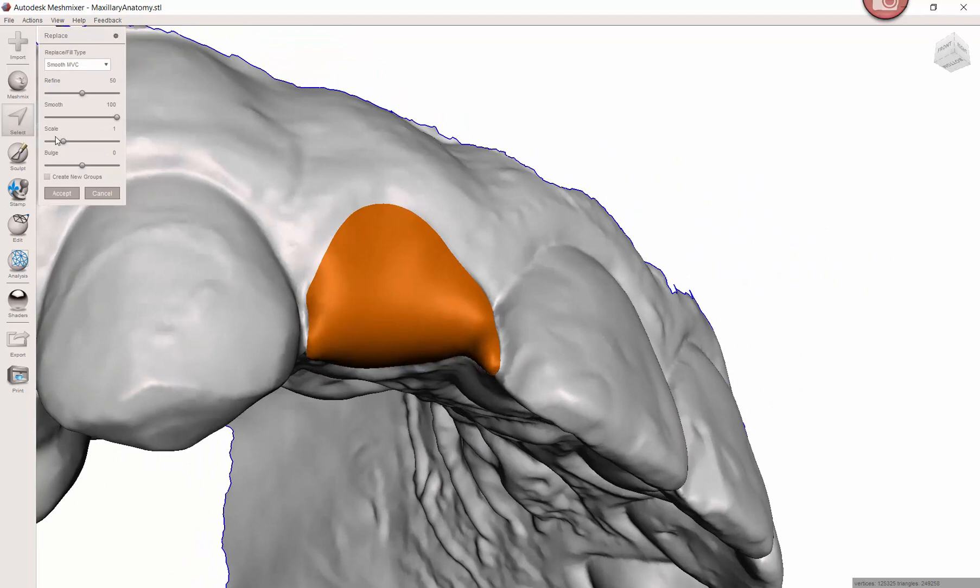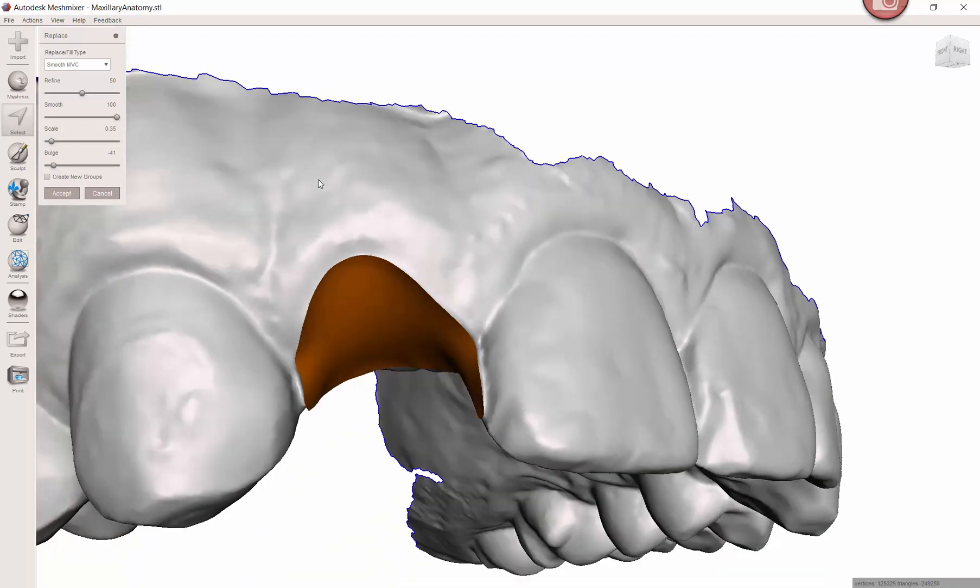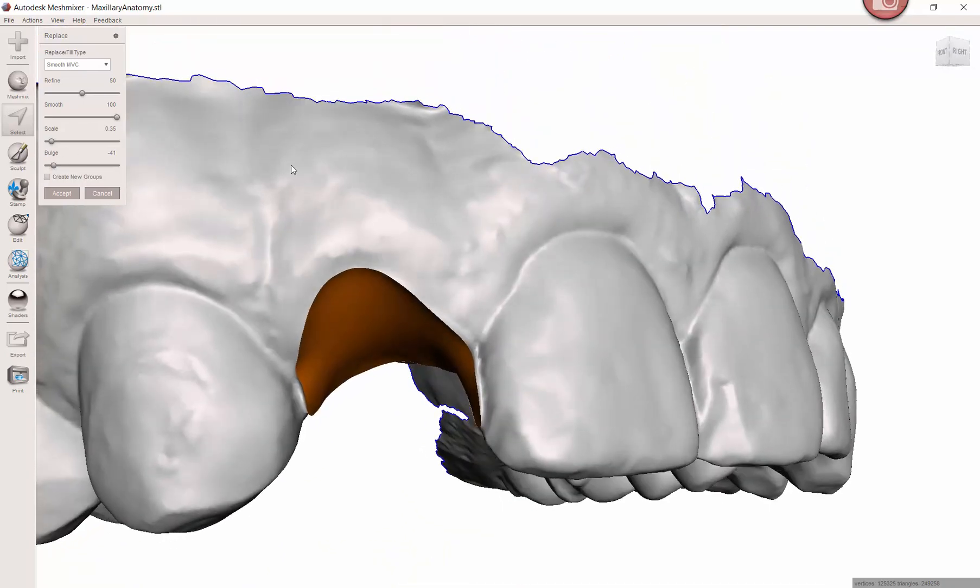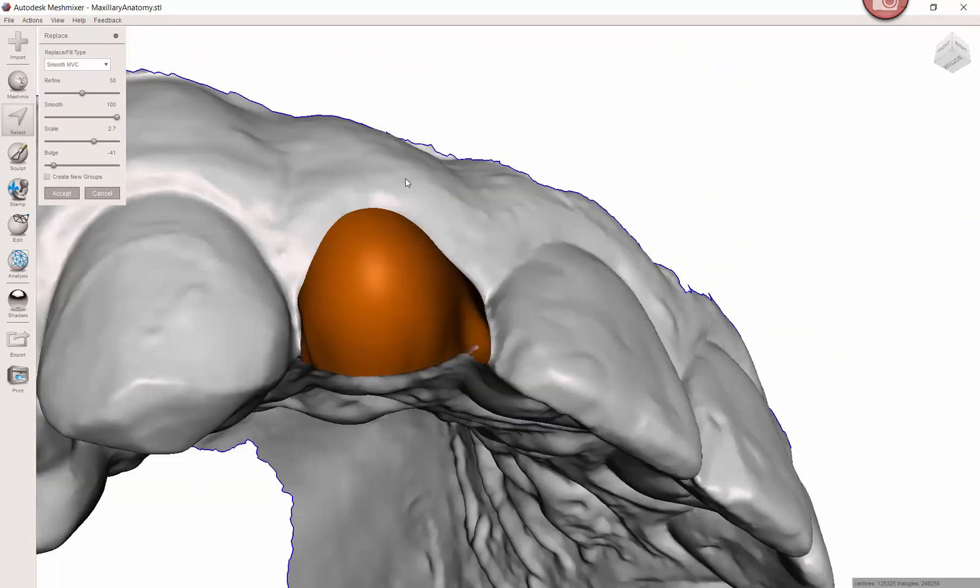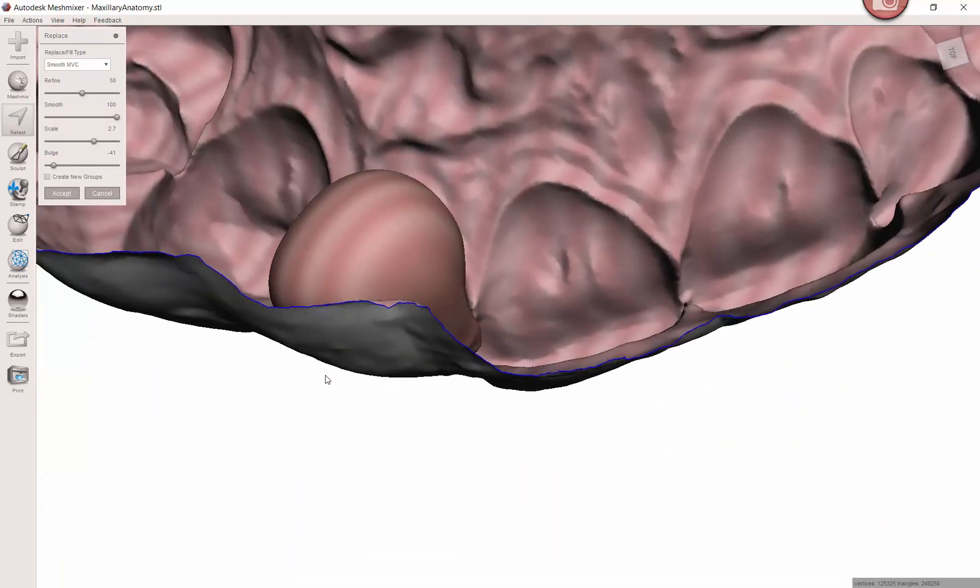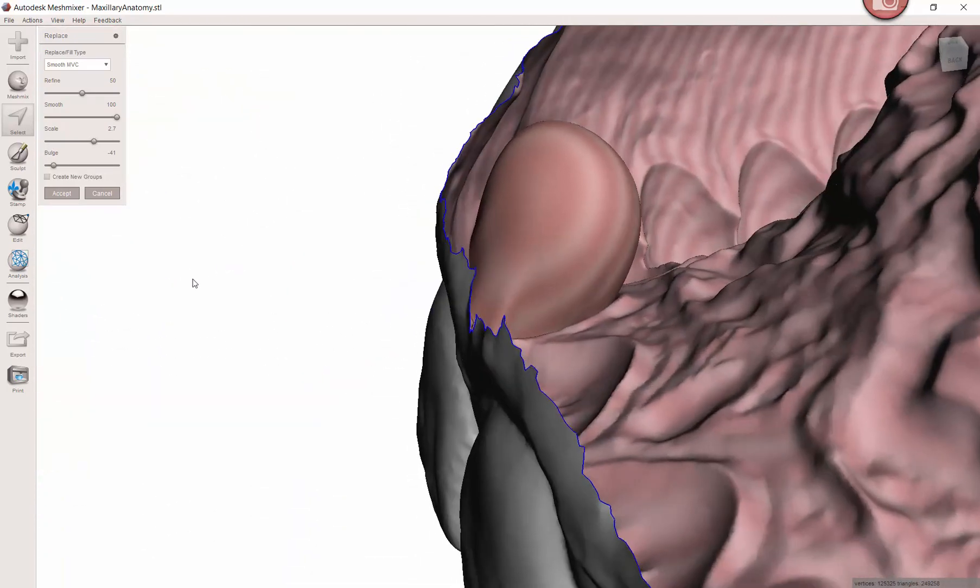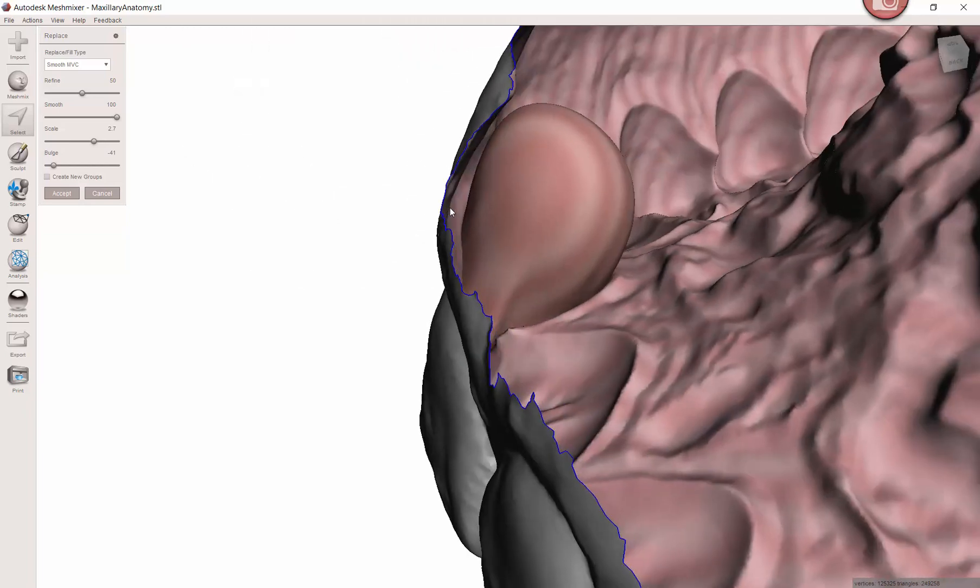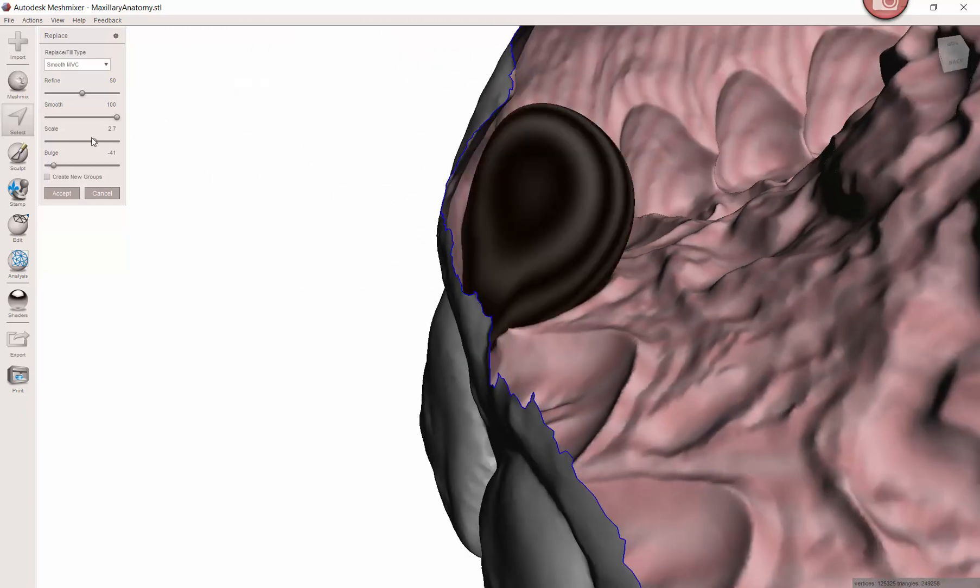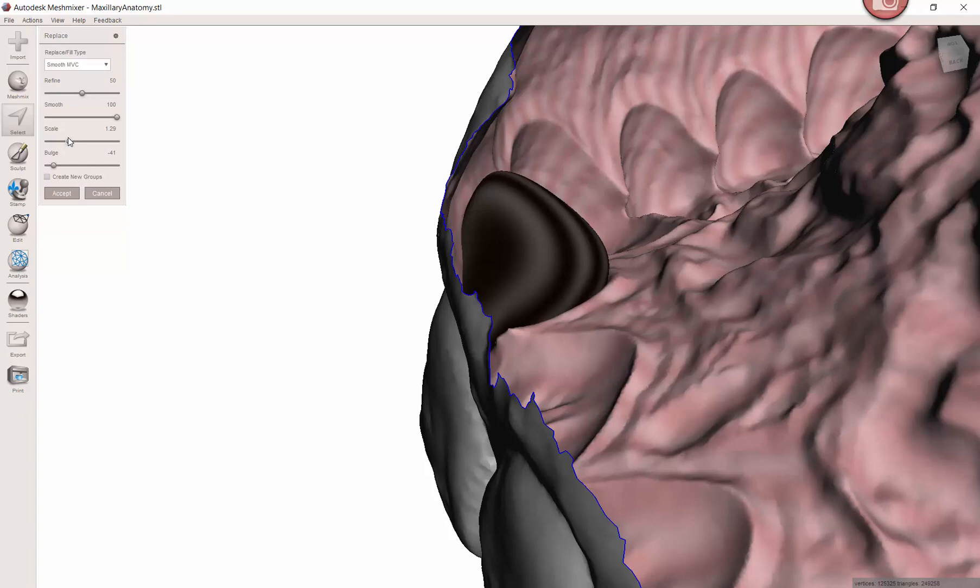I'm going to adjust these last two scale dials, the scale and the bulge. I tend to bring the scale close to all the way down and the bulge almost all the way down. Now it's really just tinker around with these. If you want to go super deep, you can see how far that extends. Obviously that's overkill, but you can see that you've got the ability to truly manipulate how ovate you want this to be.